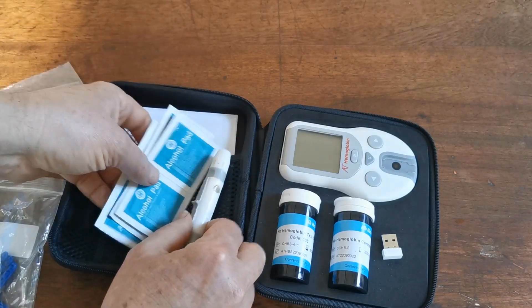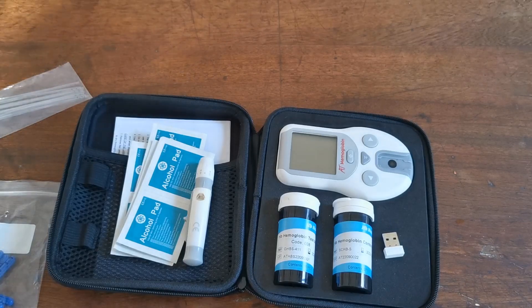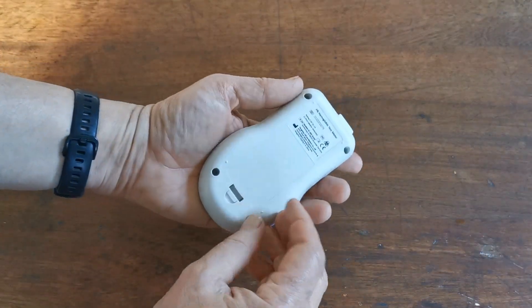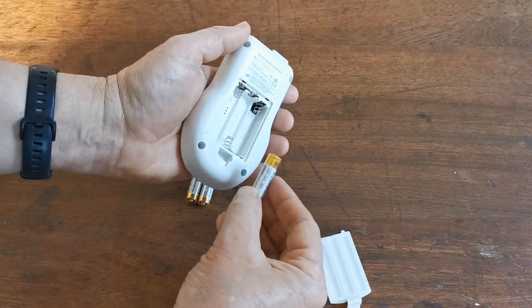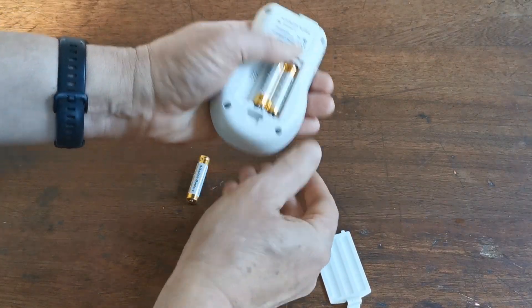We're all ready now to start setting this meter up. We're going to show you how to set the time, date, and codes — everything ready to do your first test. Turn it over and open the battery port on the rear. You'll see the battery compartment there. It's quite easy to insert the batteries — they go alternate ways in series.